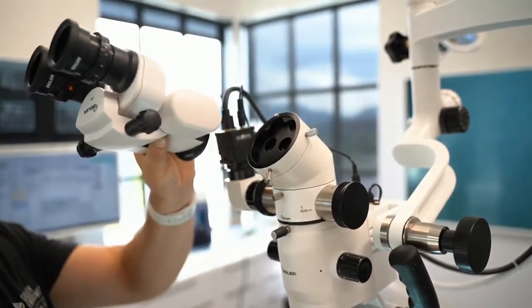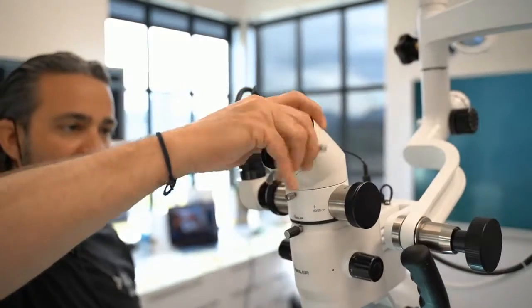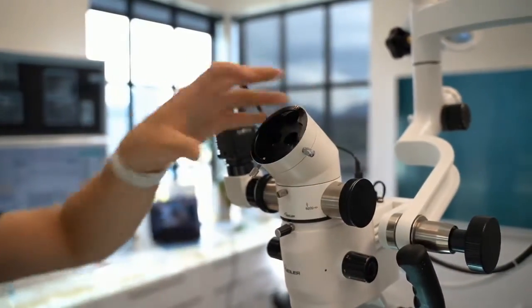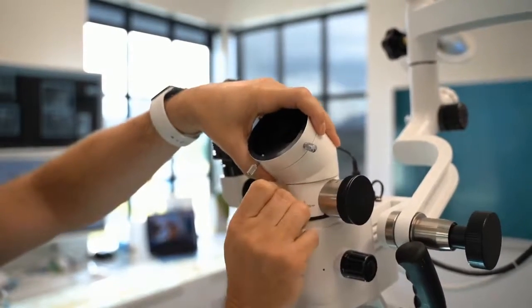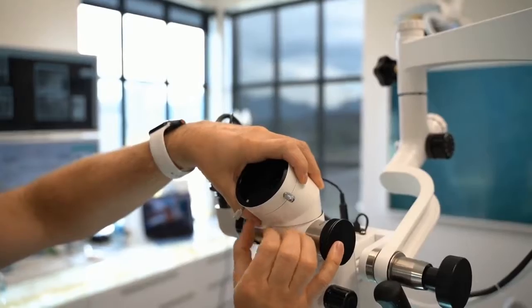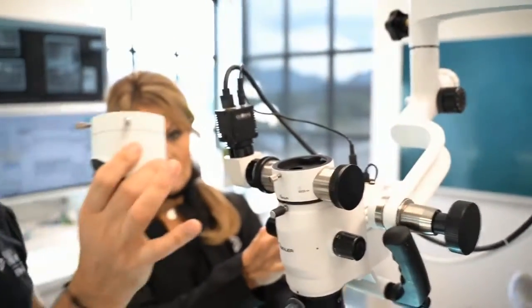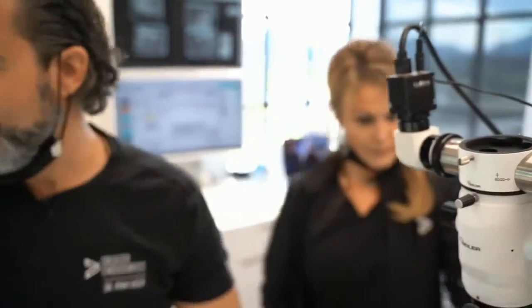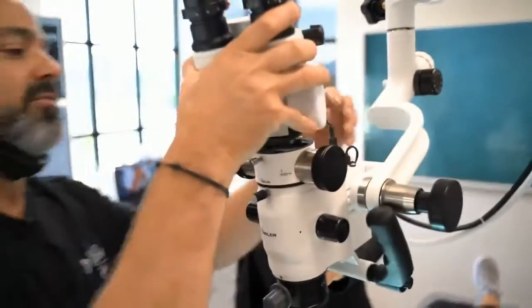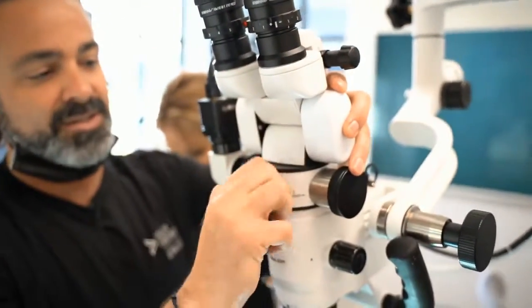If I work from like a side position, this becomes important for the correction, but the distance away is not that important. And so if I were to take this piece off, Vicky, will you hold my arm down since my weight's changing? These things are balanced, so I'm going to have her hold that down. So this piece here, if I were to take that off and put my eyepiece on, which is sort of the more common configuration, it does a couple things.